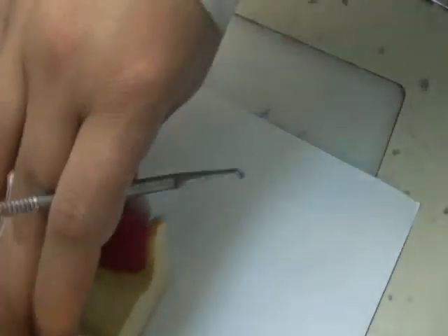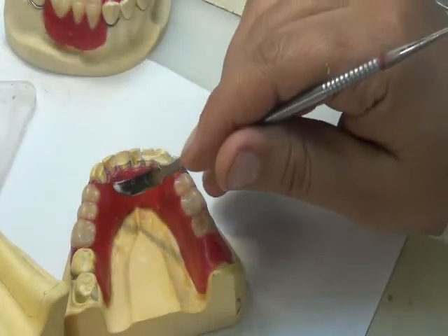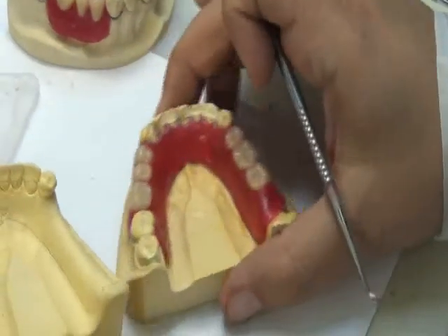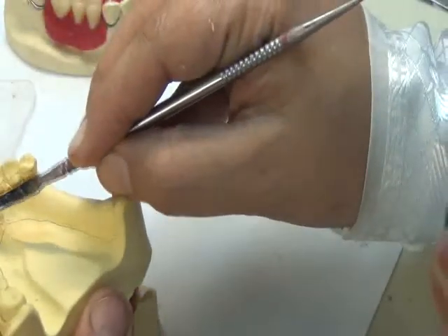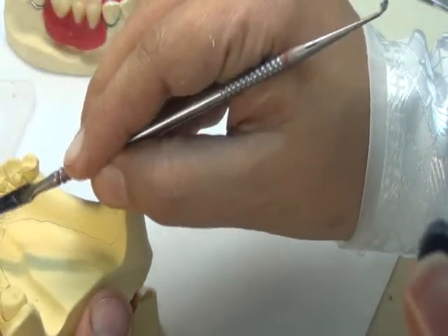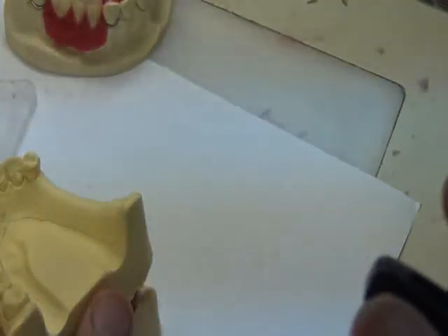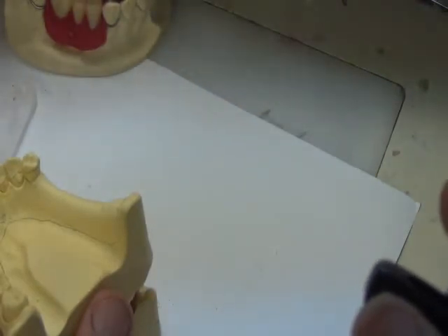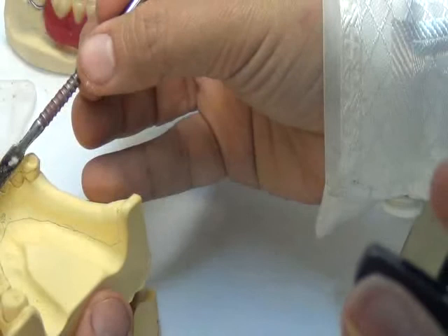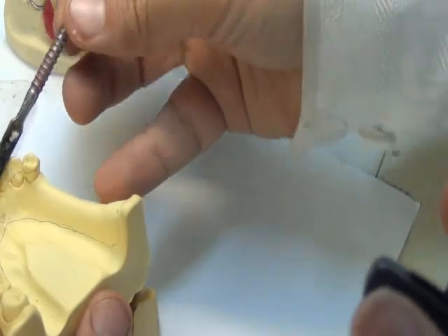So if this solid acrylic comes in between the teeth in this manner, okay? If the acrylic goes in between teeth, and while inside the teeth it's very close to the marginal gingiva, it will traumatize it. Okay? So we do another type of blockout that we call arbitrary blockout. We are just simply trying to put the plaster in a way that it covers the marginal gingiva, and it's not done by the surveyor.